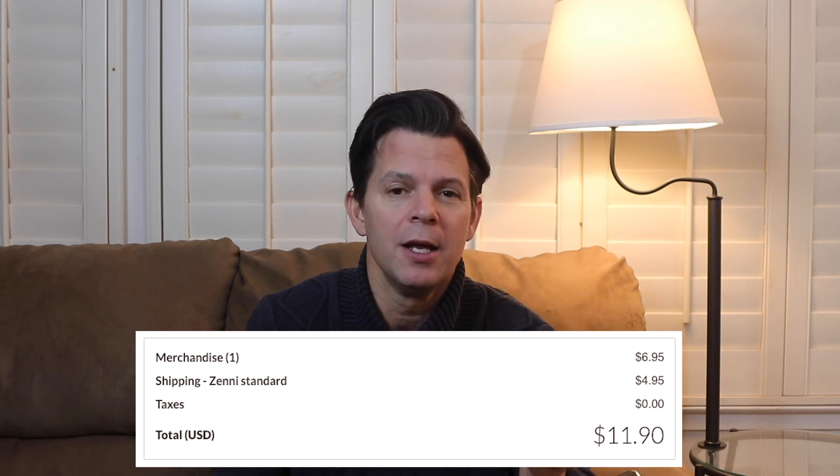I took the tests and got my prescription, but it looked way different than my regular prescription, which right away made me unsure it would work. Still, I went through Zenni Lens and ordered — I'd come this far, I had to find out. Two weeks later the package arrived. I order from Zenni a lot because prices are good and the range is great — you can get cheap stuff or nice stuff. Got the plastic case they always send with the glasses inside. Very excited. This is a live unboxing; I haven't tried these yet.